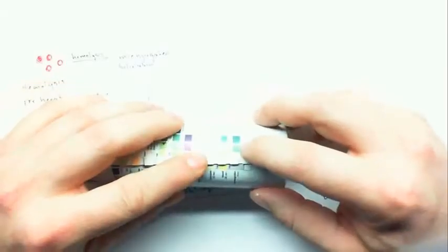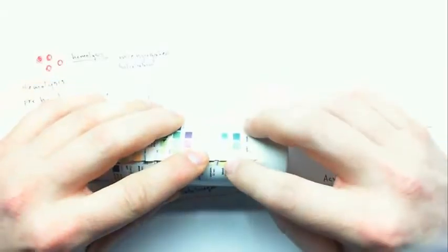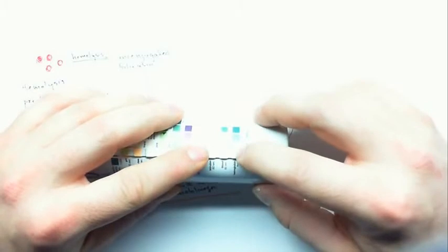If that blood cell is already lysed way before it got into the urine or in the urine itself, then it's dispersed that hemoglobin throughout the urine, and so you'll see more of a uniform color. So if there's spots, it means there's blood. If it's uniform, it means there's hemoglobin.